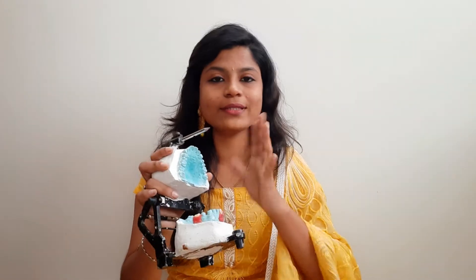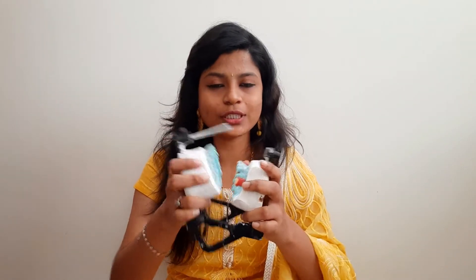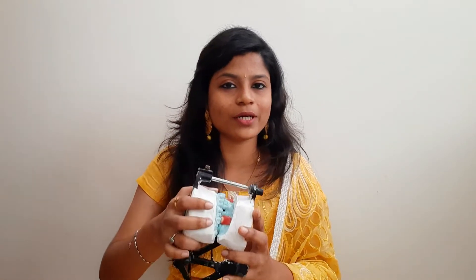What is the purpose of this Articulator? The maxilla and mandibular are fixed in each relationship. In that fixed relationship, the Articulator allows us to replicate the jaw movements.